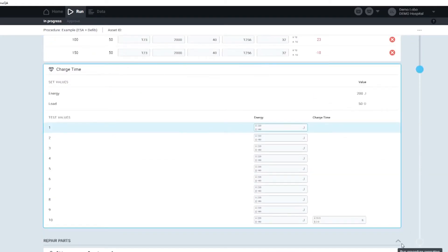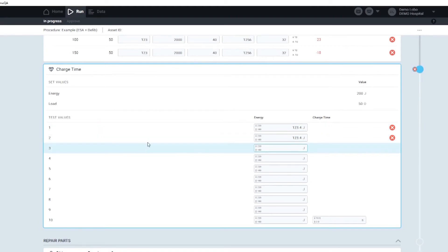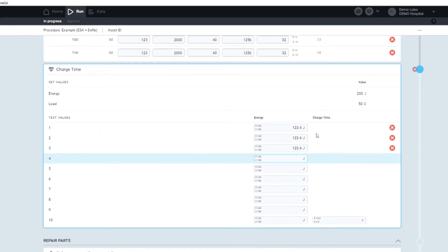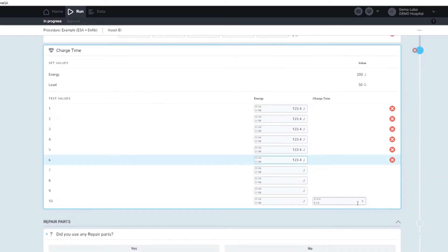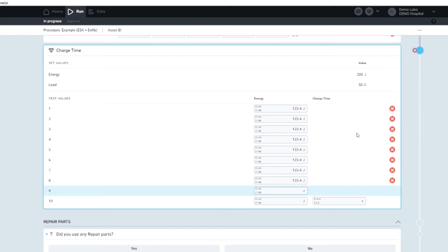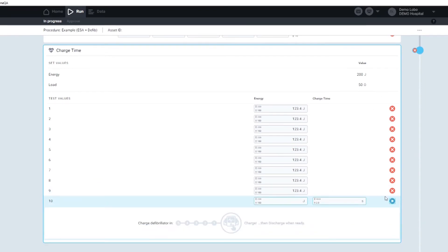And I'm also continuing. Now I'll test the charge time component. It will quickly go through and auto-populate the test results into my report. As you can see, we're at number eight, seven. It quickly goes through. This is actually my favorite component just because I really like seeing the checks.